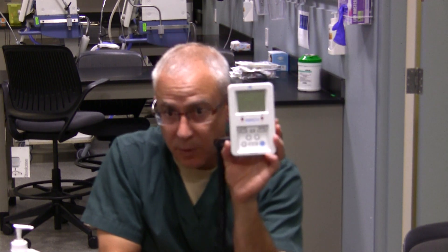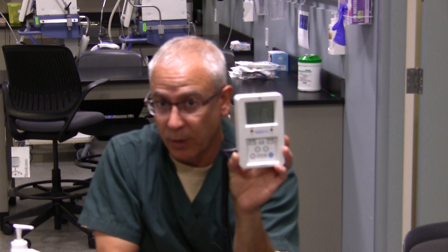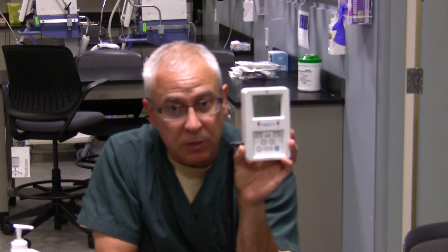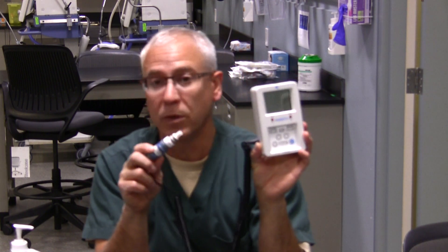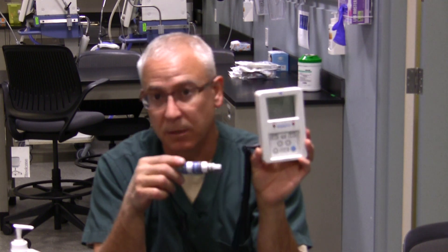When you're using an oxygen monitor, you should calibrate it beforehand. Calibration means doing a two-point check — a low calibration to 21% oxygen and a high calibration to 100%. You want to do this to make sure the device is going to analyze and display the results correctly.